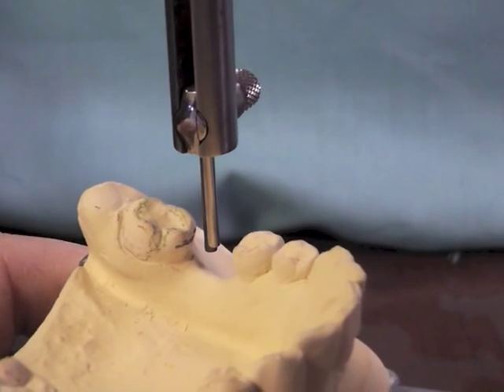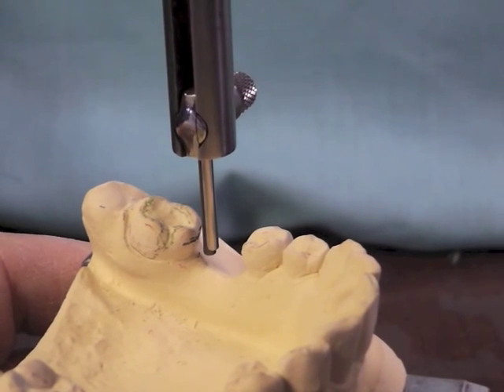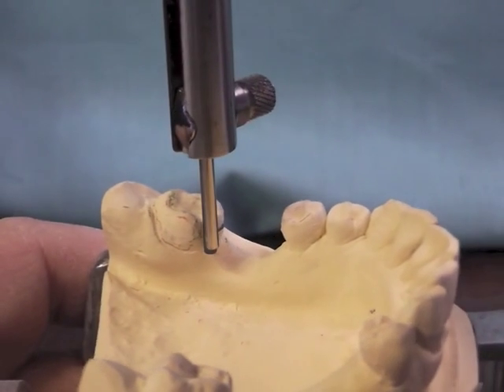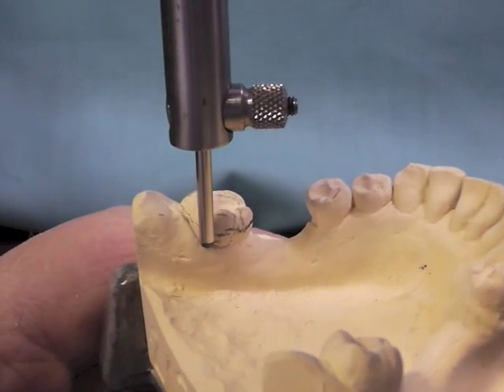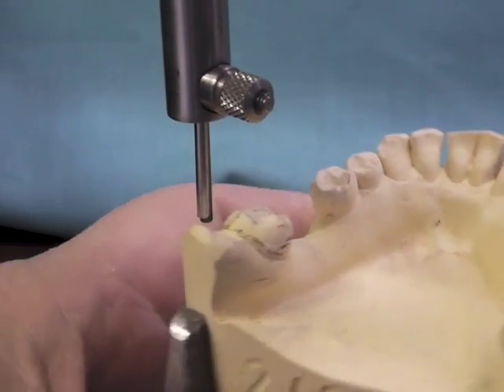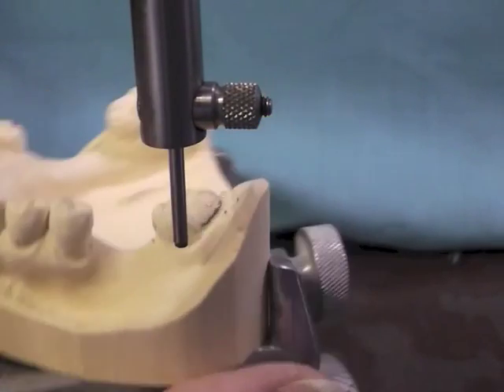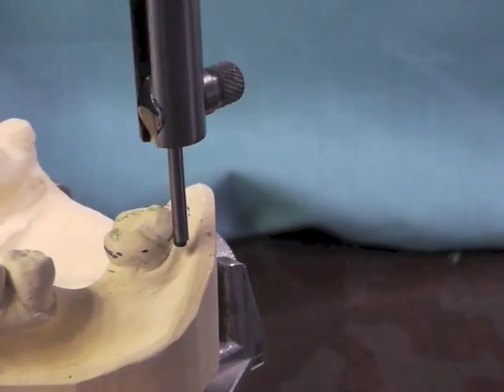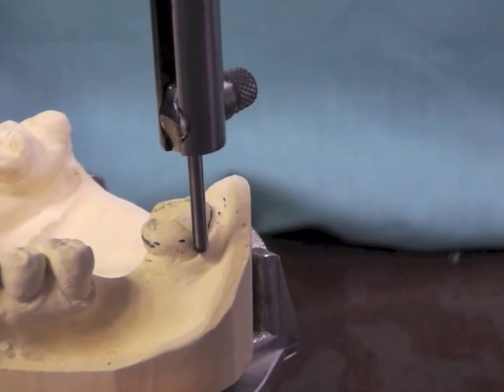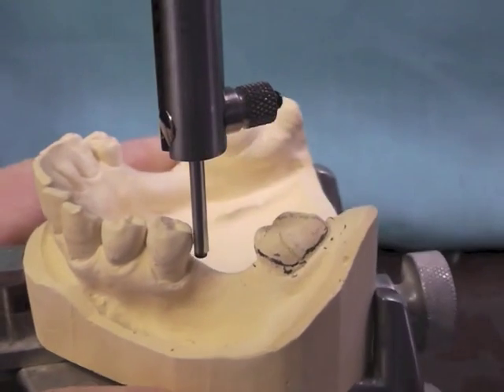I have positioned my lead with the lead sheath protecting the lead, so that a little bit of the lead is below the sheath itself, but the sheath is protecting the lead when I put pressure on it. So we're going to start — again, we place the side of the lead against the tooth. We don't want to place it up high, because then we're making the survey line without allowing the height of contour of the tooth. So when you're positioning this lead, we're going around those teeth keeping the lead at the gingival level, and we're placing that lead up against the tooth so that the side of the lead is making our survey line.